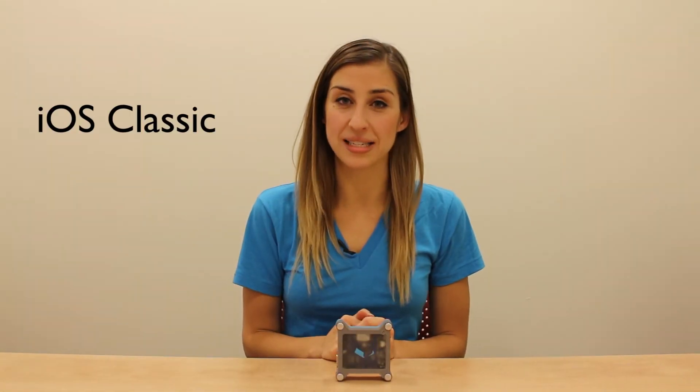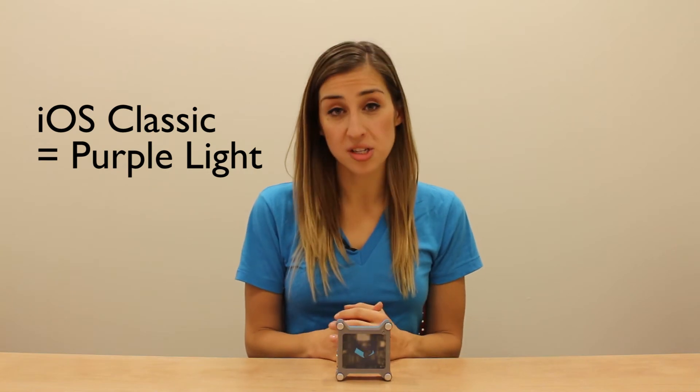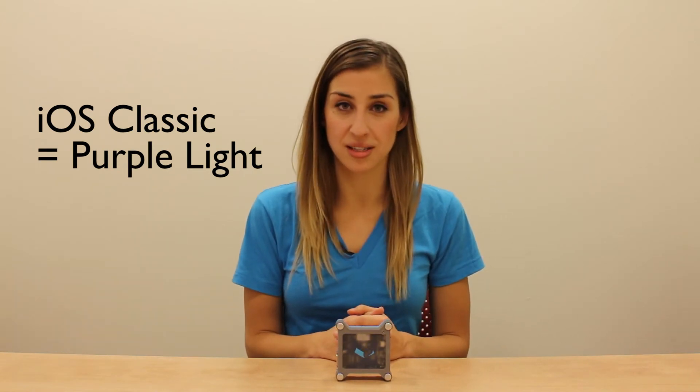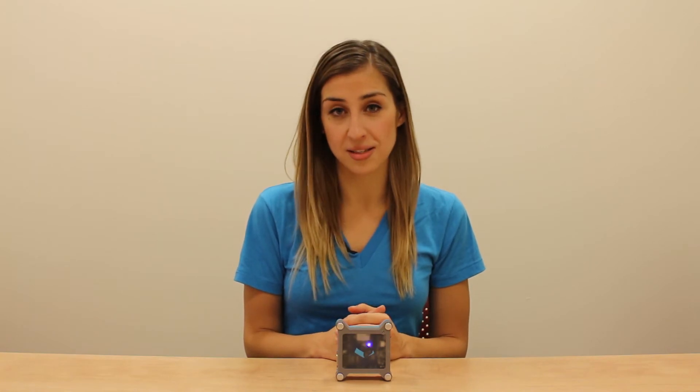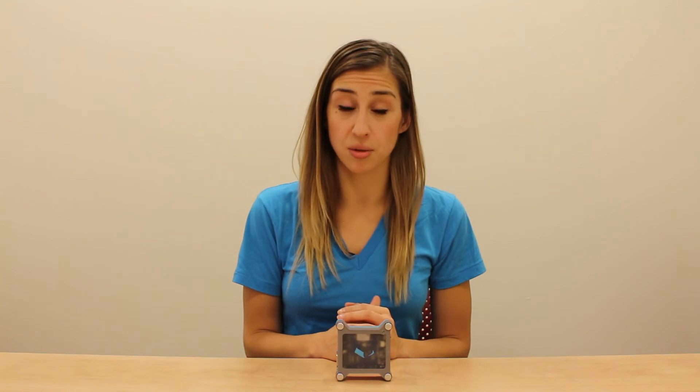Next is iOS classic, identified by the purple light, which was the first mode we ever created for the original Tecla Shield. This mode is used with iOS devices that are running iOS 6 or earlier. This is also a good mode for users who have a visual and mobility impairment, as it provides better auditory feedback for the controls of the screen.